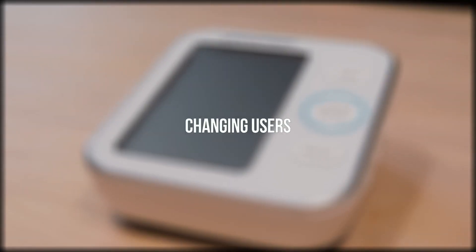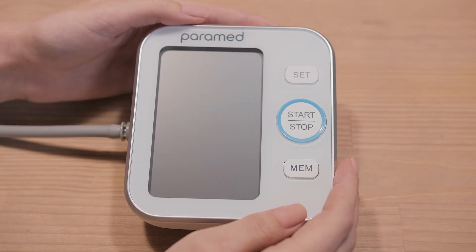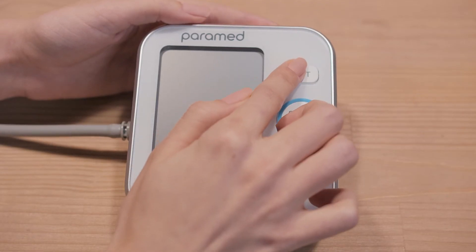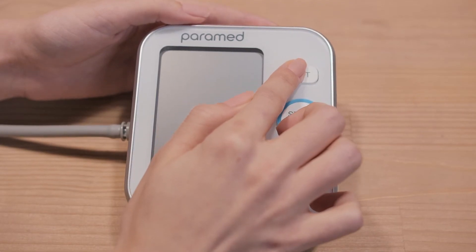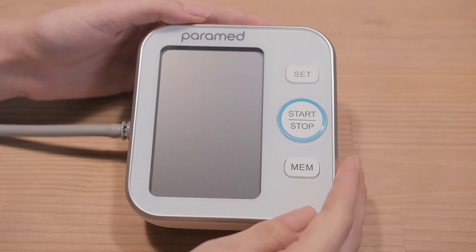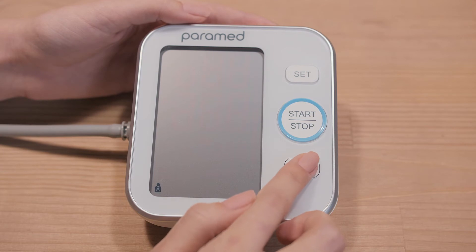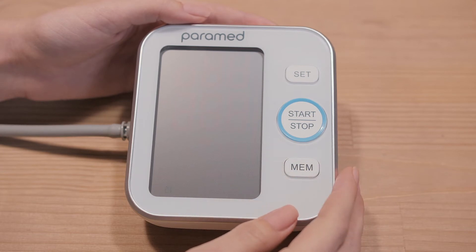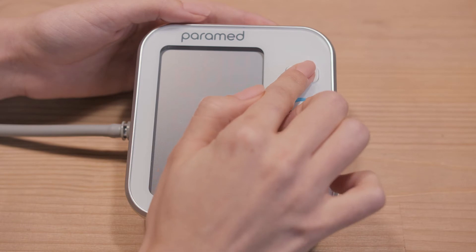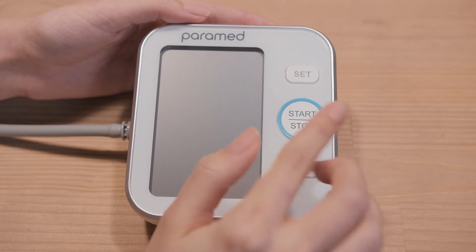2. Changing users. While the screen is off, press the SET button and hold it for more than 3 seconds. You will see a blinking A symbol on the screen. Press the MEM button. You will see a blinking B symbol. Press SET to save, then press the OFF button.